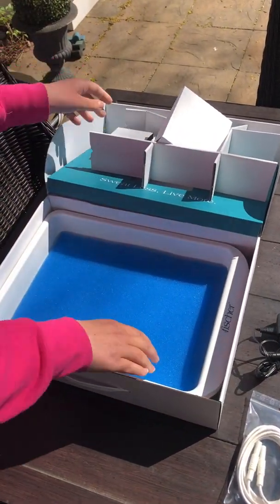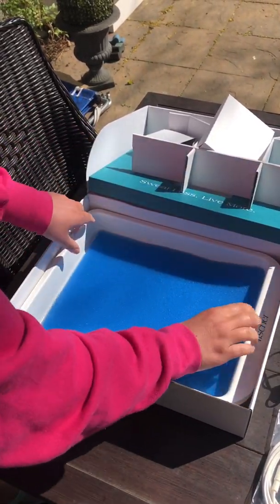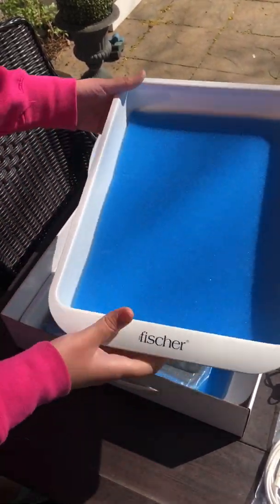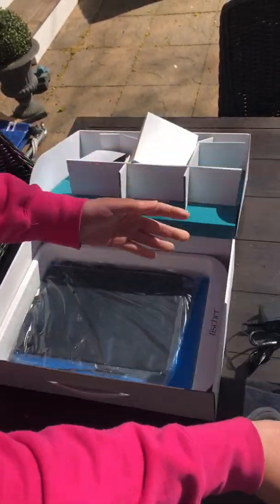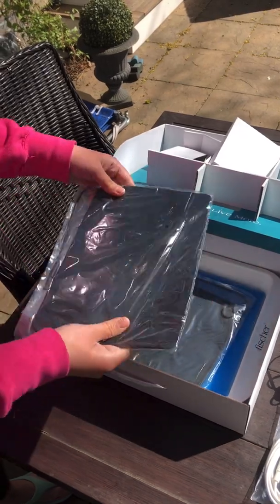The thing I'm most excited about seeing is these new water bath trays and electrodes. The trays are much wider and use a piece of foam versus the traditional towel method. There's a nice thick piece of plastic on the bottom of each tray to allow for a comfortable wrist rest during treatment of the hands.